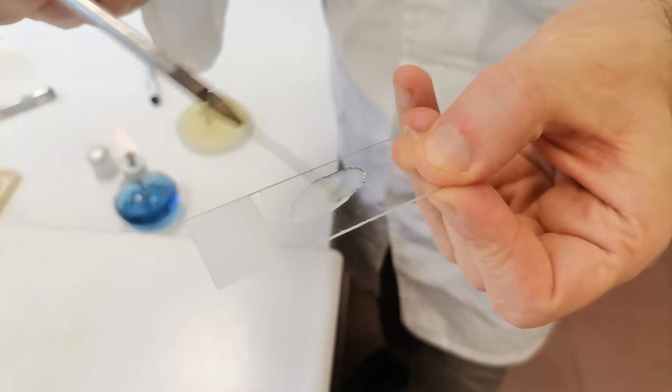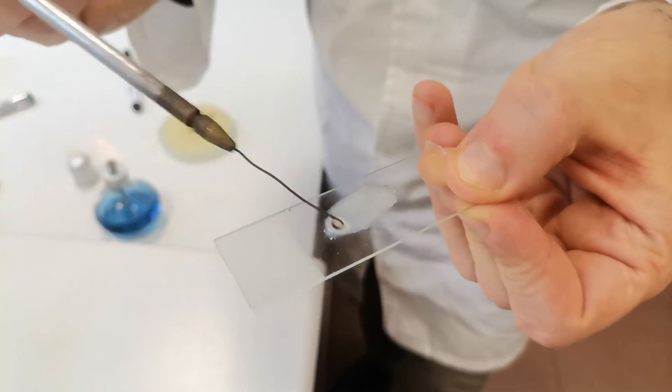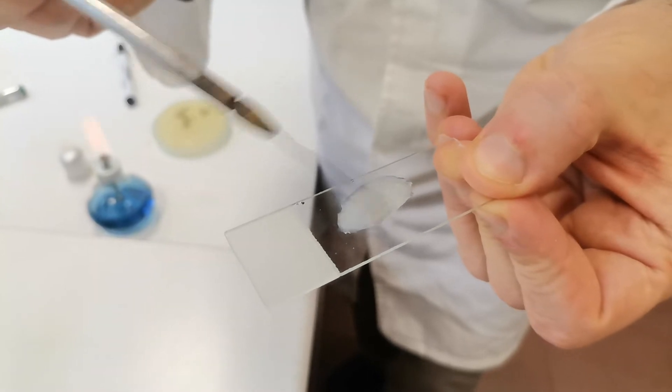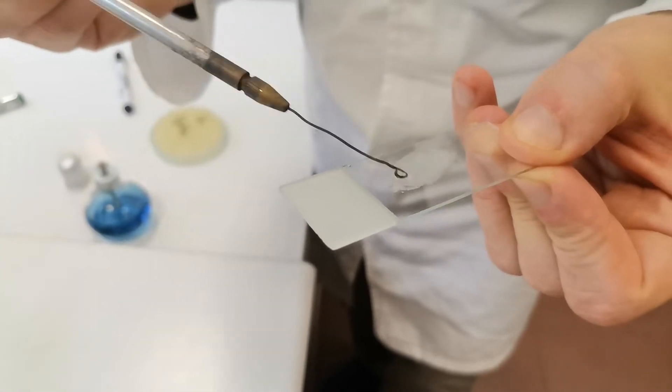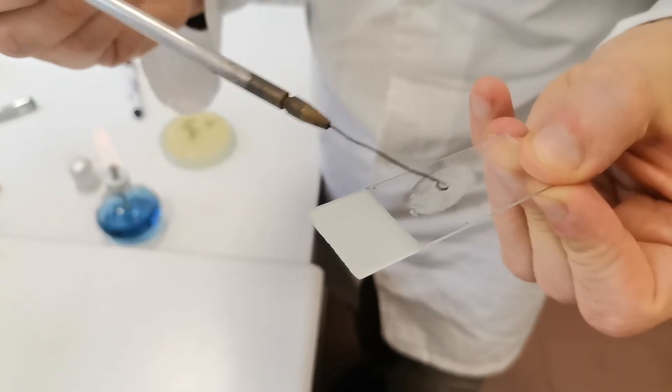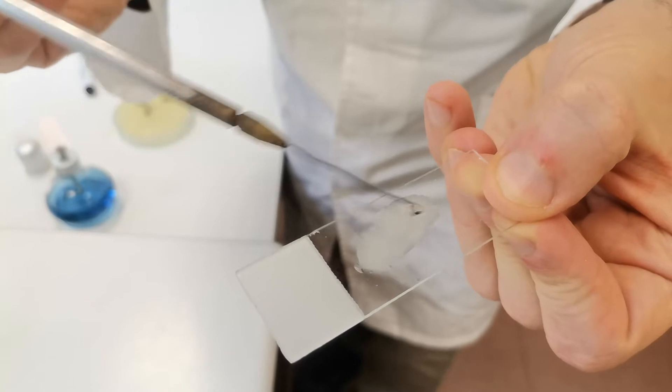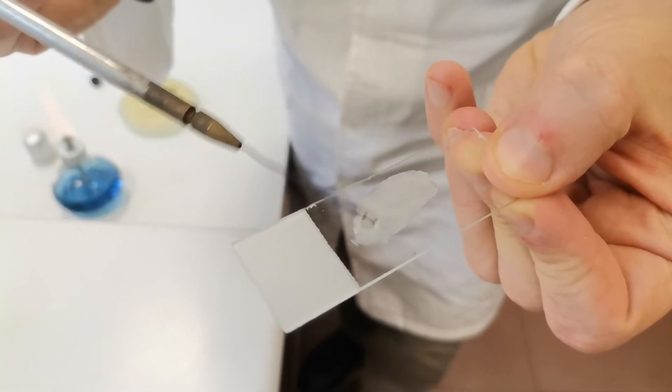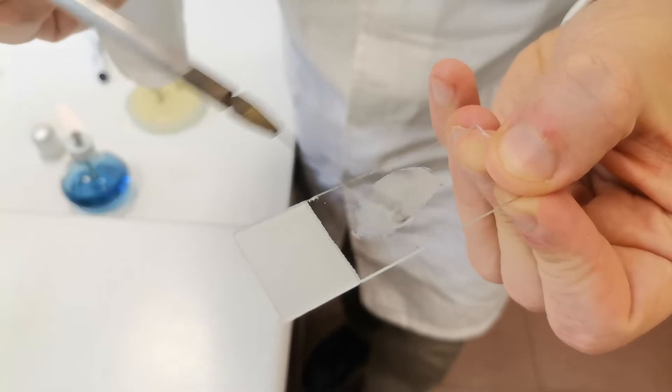You need to do such circular movements for at least several seconds, preferably 20 seconds, but sometimes even less. You see, the drop remains quite unclear and turbid. This is not agglutination. This is a negative reaction.